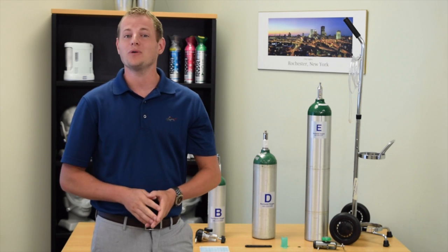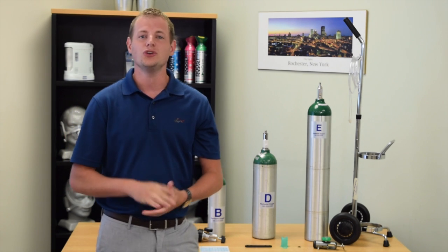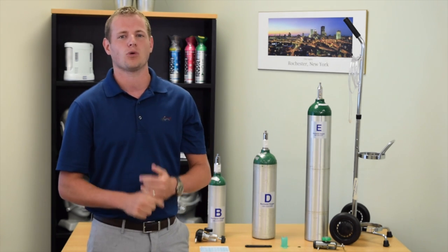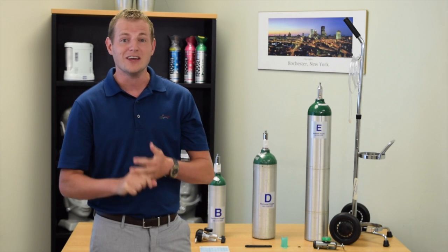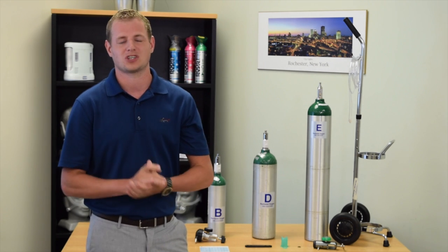It is important to note that when you are prescribed home oxygen you should receive a setup folder that contains the majority of this information as well as safety guidelines and storage guidelines.